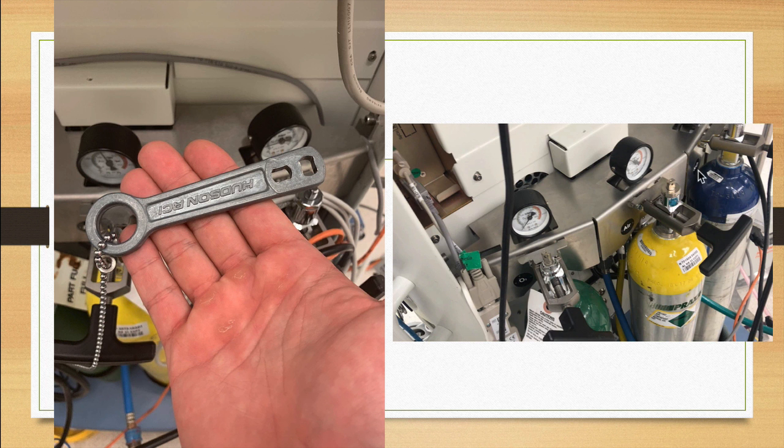All right, in order to open up each of these canisters, you have to have a special key, and that key usually chills right here in this little slot. You'll see that I'm holding the key in my hand here. This little hole here goes over the top of this little part here, and it's oriented both in a horizontal and vertical direction just for ease of use. And then it's righty-tighty, lefty-loosey.